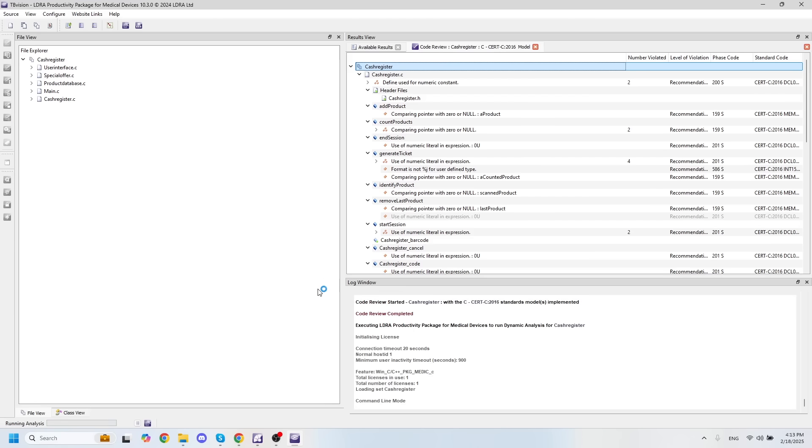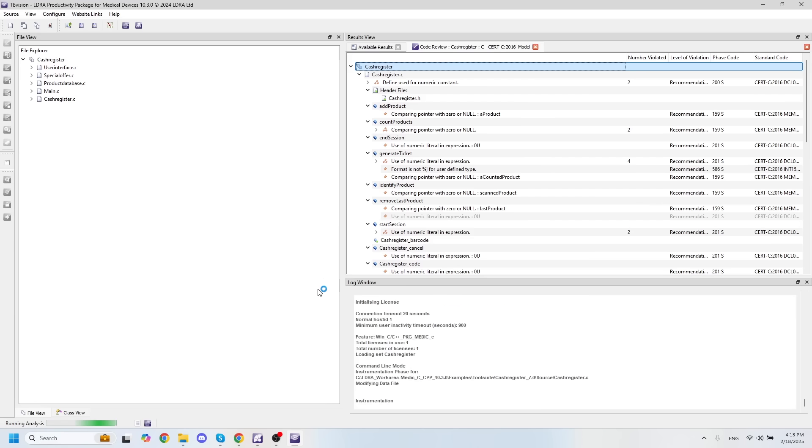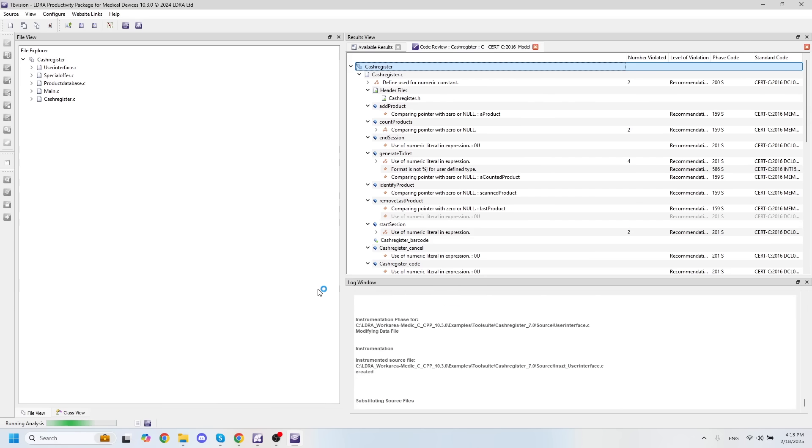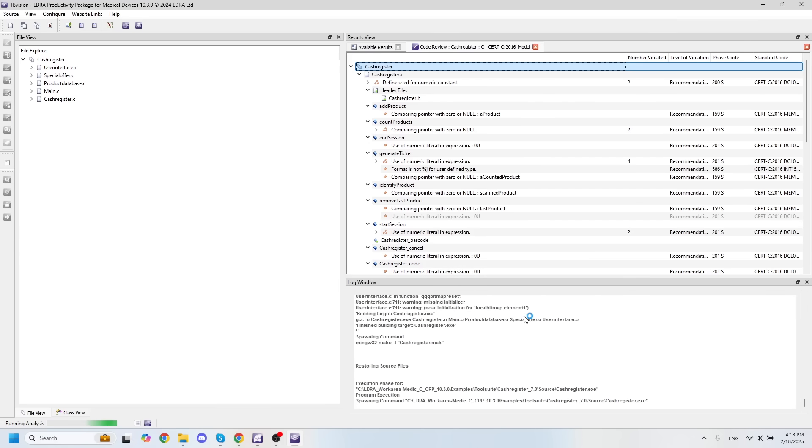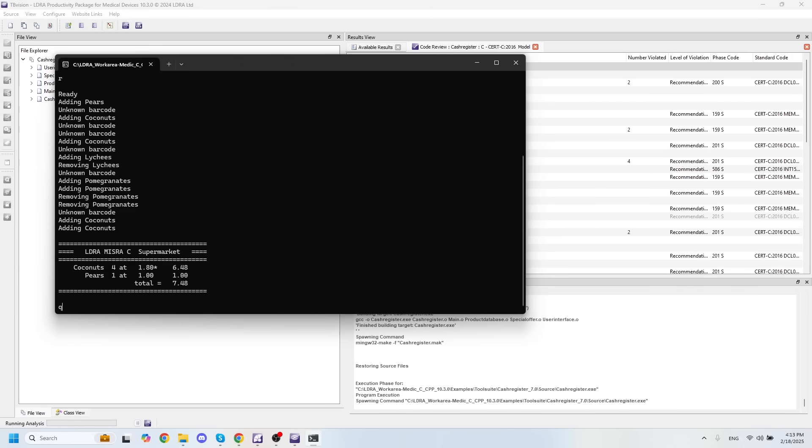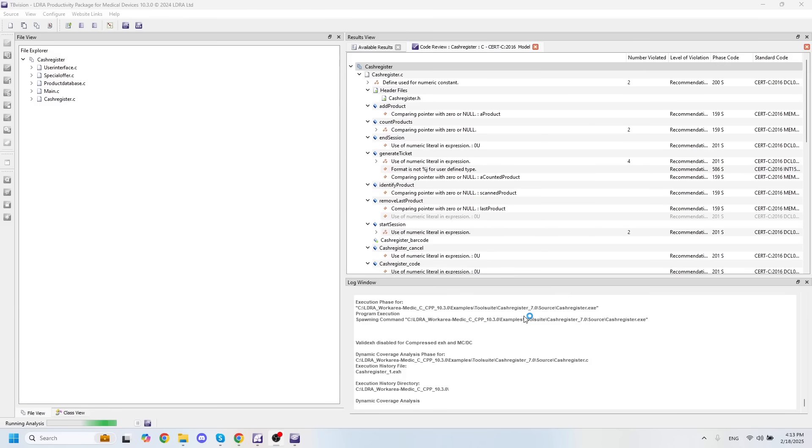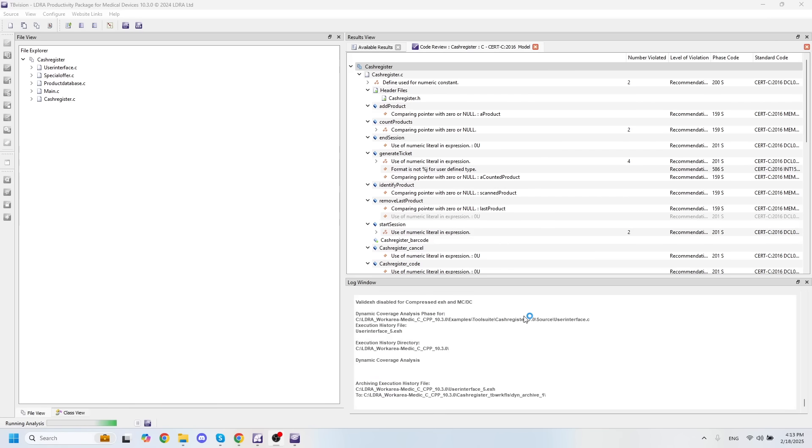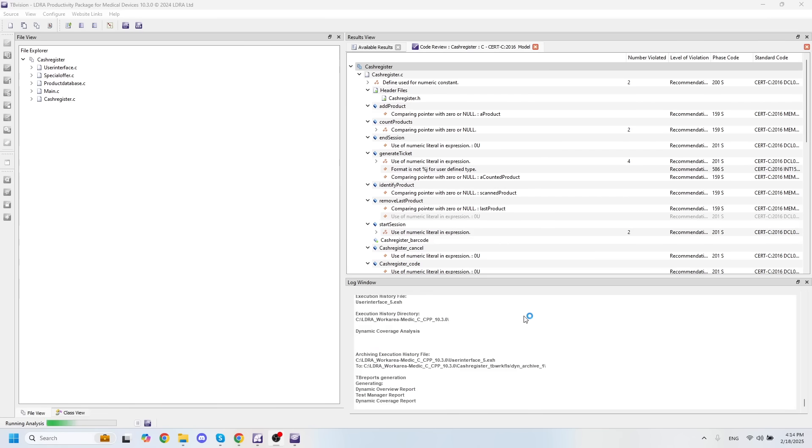And this is going to enable my MinGW compiler to run my project as normal. Here I can put in some user inputs. And we'll let my program finish running and gather all of the execution history and we'll see you when it's finished.